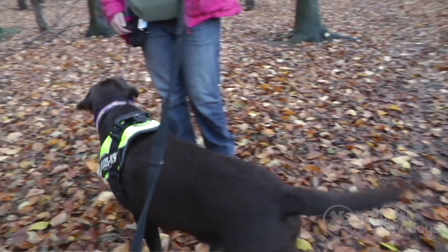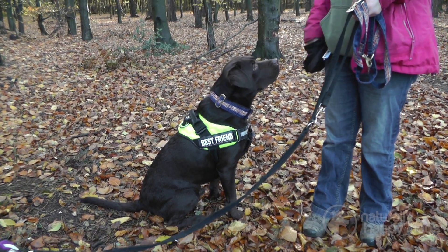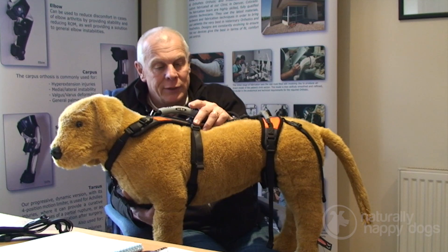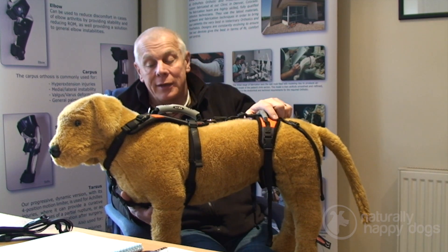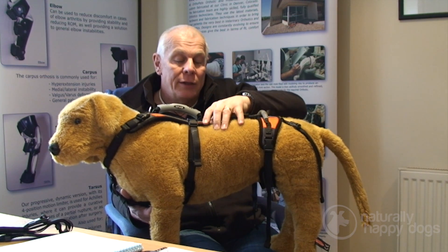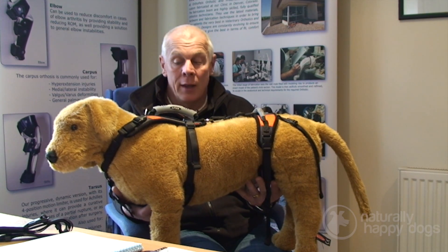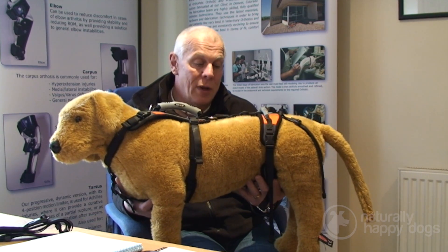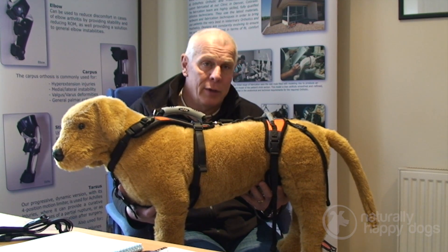There are a lot of harnesses on the market designed as walking harnesses, designed to be used with a lead in lieu of a collar for controlling your dog on a walk. What they're not designed to do is actually lift the dog up — unfortunately a lot of them are used for lifting dogs, to help them up the stairs or in and out of the car. If they're designed as a walking harness, they are not going to be supporting the dog correctly when it's being lifted. If the force or the weight is spread over only a few straps, those straps will pull into the dog and could be very uncomfortable — it's like being on all fours and someone lifting you up by your belt.